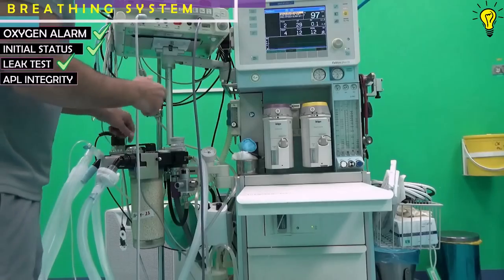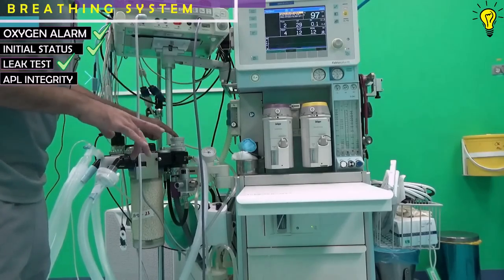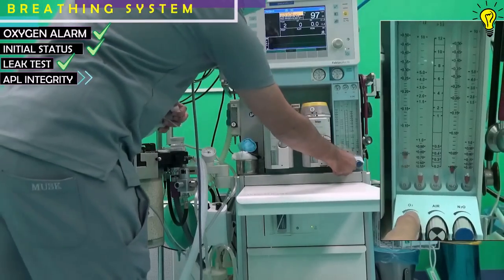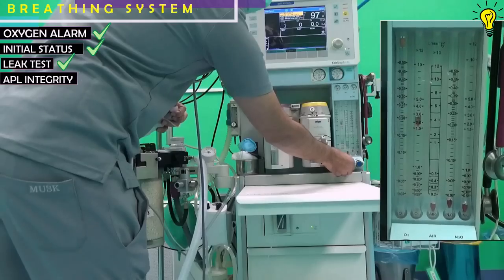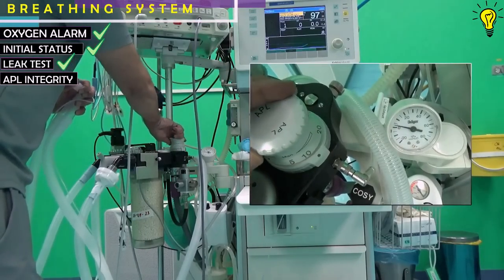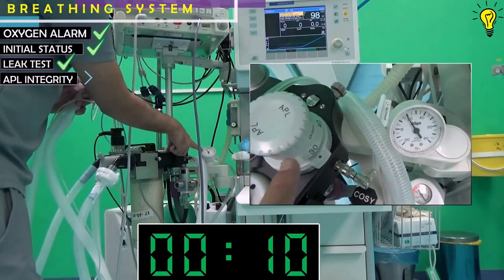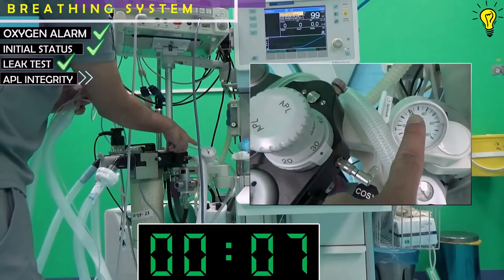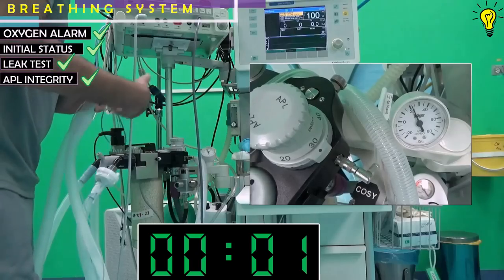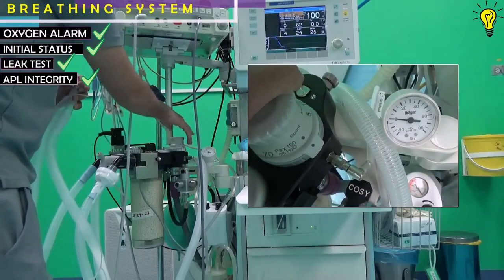Another way to detect APL integrity and its ability to maintain pressure within the circuit: occlude the Y piece, increase oxygen flow to 5 liters per minute, and close the APL valve to 30 centimeters of water. The pressure gauge reading should increase all the way up to 30 centimeters and maintain this pressure for more than 10 seconds. Then open the APL valve and the pressure decreases.